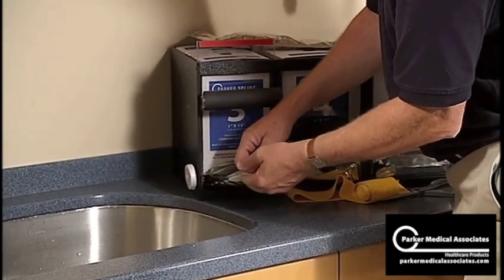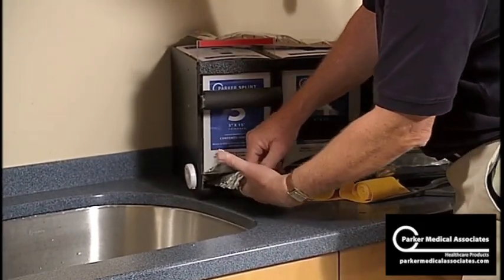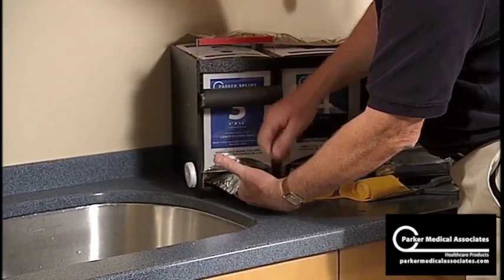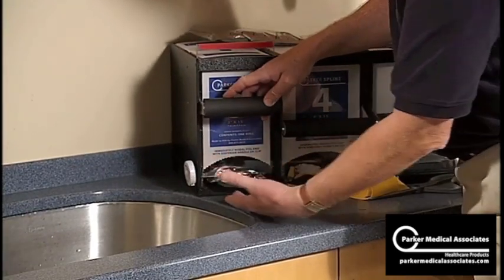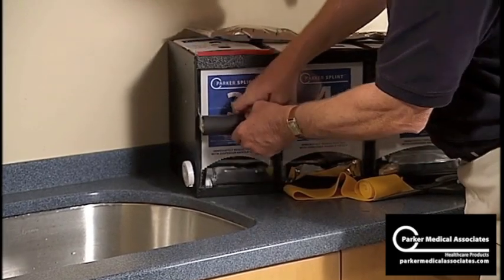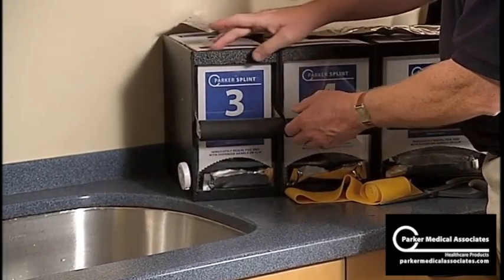Place the four fingers into the foil, put the product back in into the box, bring the door down until your fingers feel it, take your fingers out — that way you know everything is behind the door — and reseal. Make sure that red line is gone.